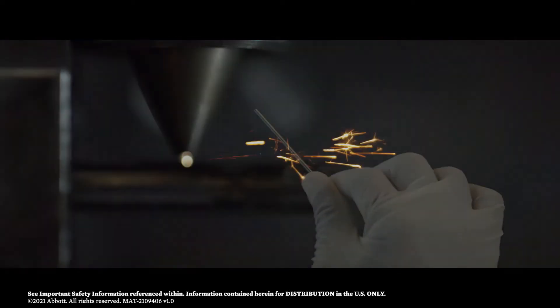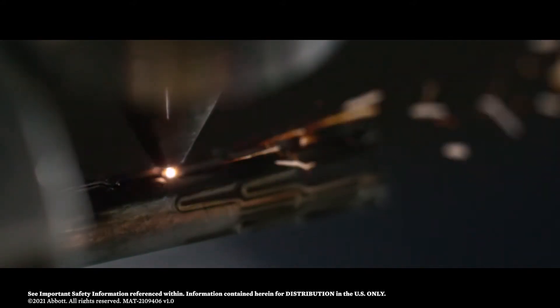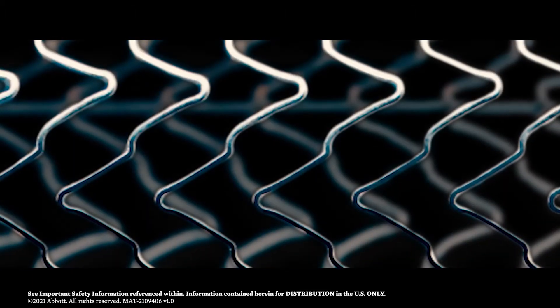The rigid tube is required to be transformed into a flexible tube by laser cutting a cell geometry pattern to form a stent, but this manufacturing process may remove too much nitinol, which can potentially create narrow, fracture-prone struts.